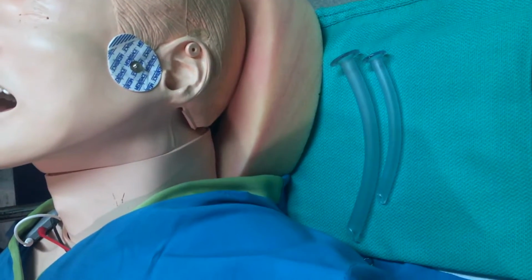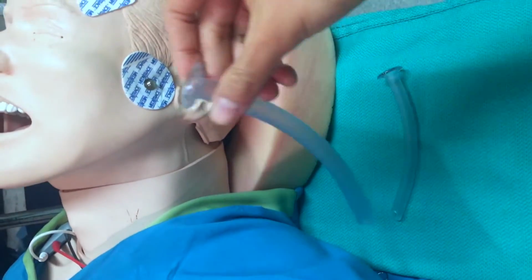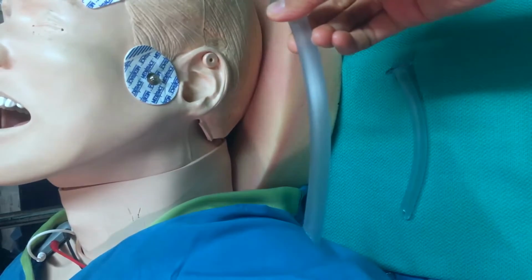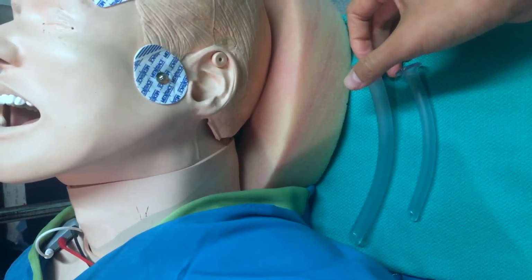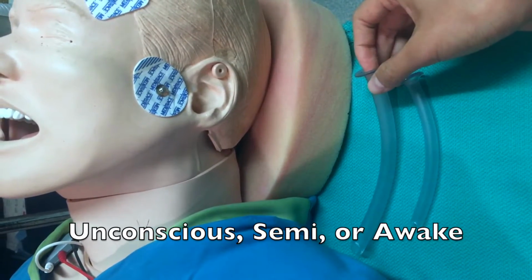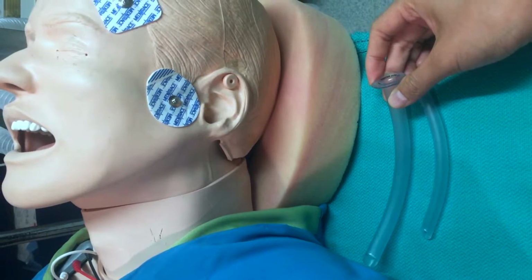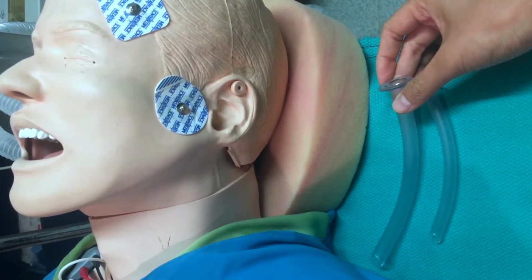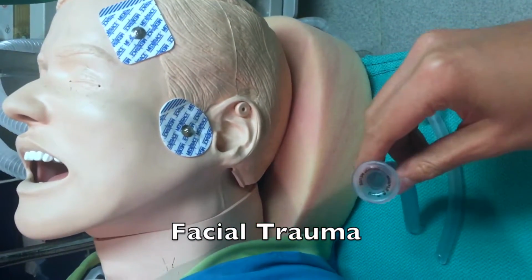Next, I want to talk about nasopharyngeal airways, or nasal airways. They look like this. Some indications for use are if there's an upper airway obstruction and the patient is either unconscious, semi-conscious, or awake; you could use this. There are some potential complications and contraindications of this use. If there's bleeding or coagulopathies, a basilar skull fracture, or facial trauma, it's probably not good to use this.